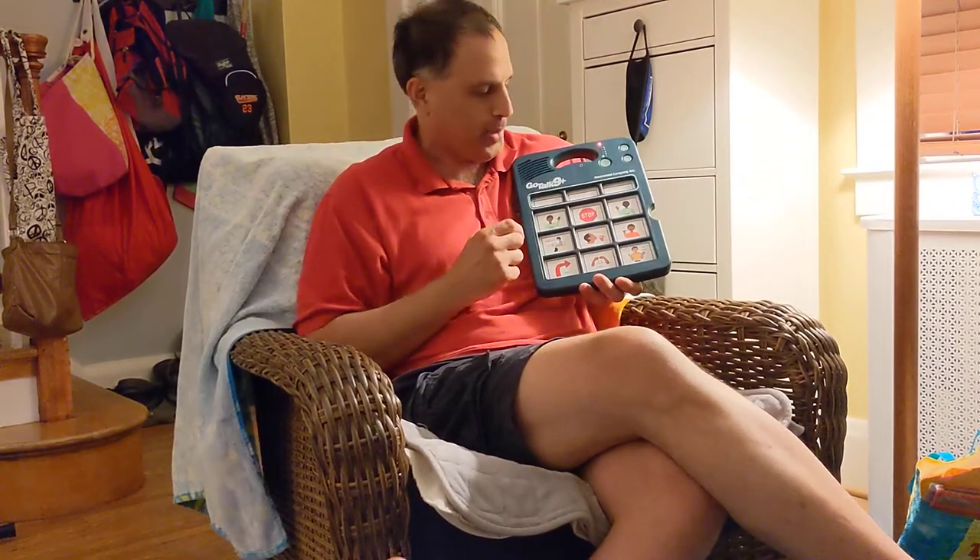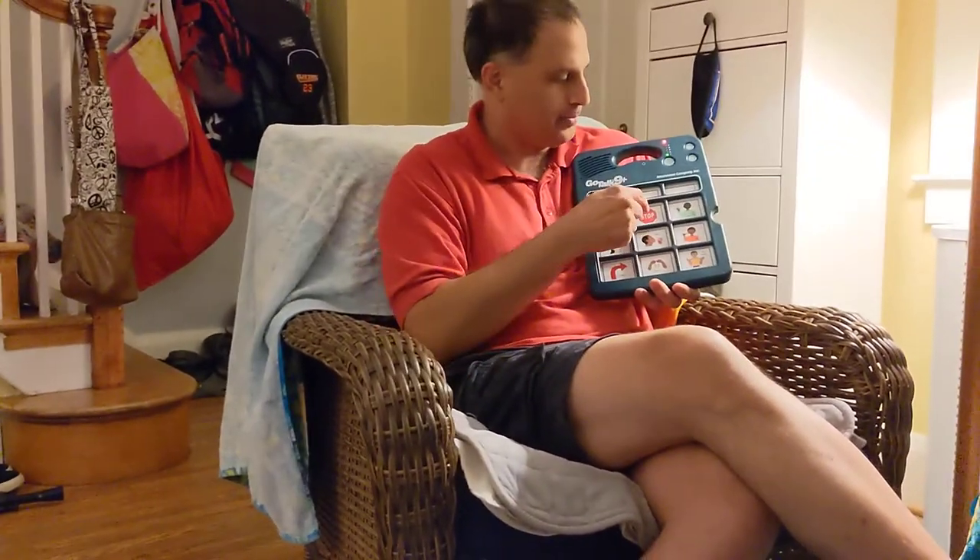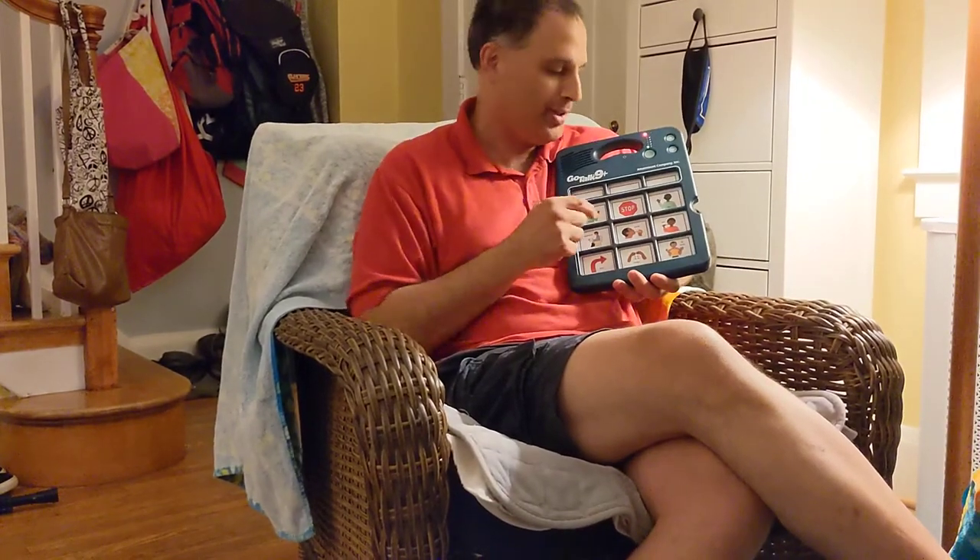Watch me. So, this is an example. If I was a different person and I wanted my new voice to be in these buttons, I could say: "Hello." That one's done — it's not recording. "Stop." I finished recording that one. "Bye." I finished recording. You can see the light blinks while I'm recording.